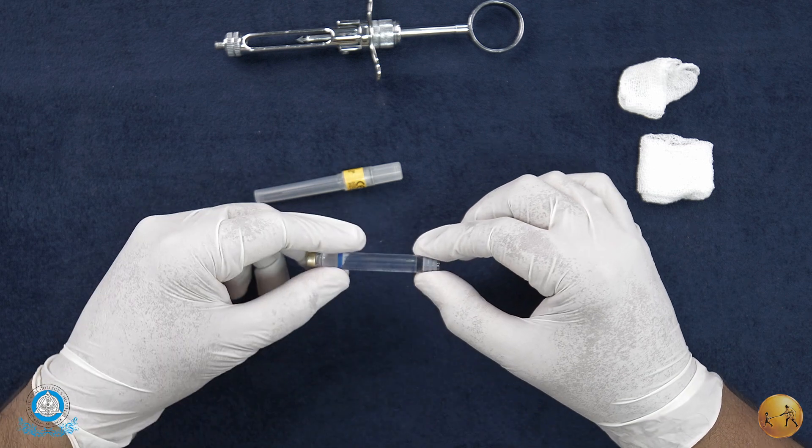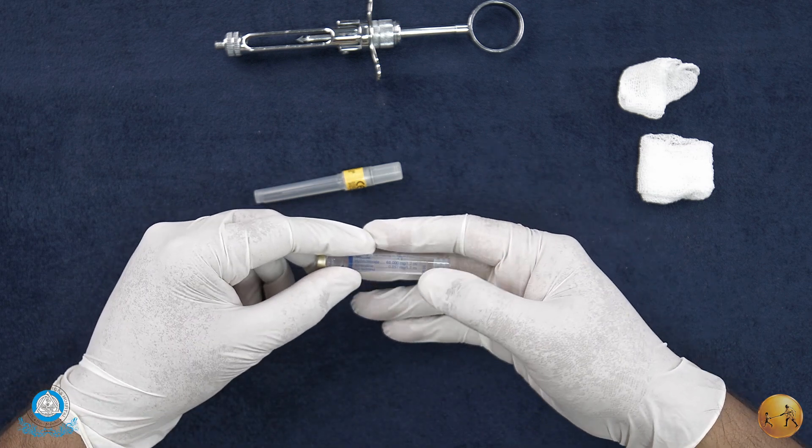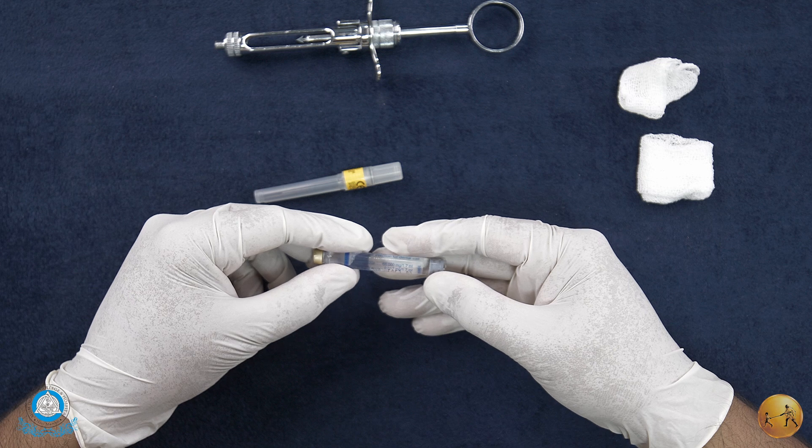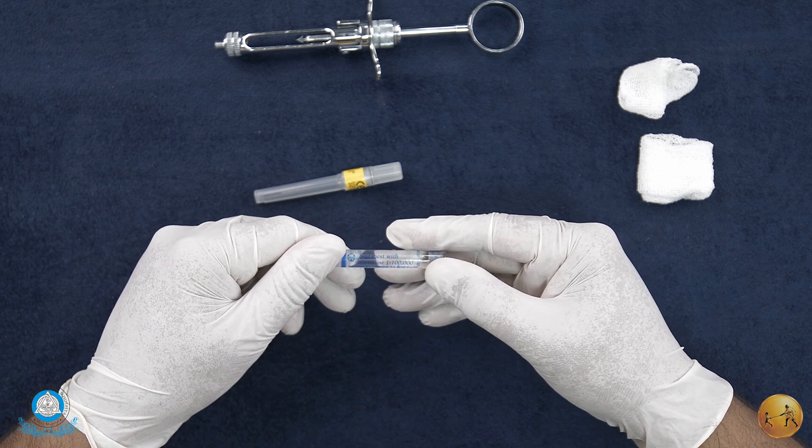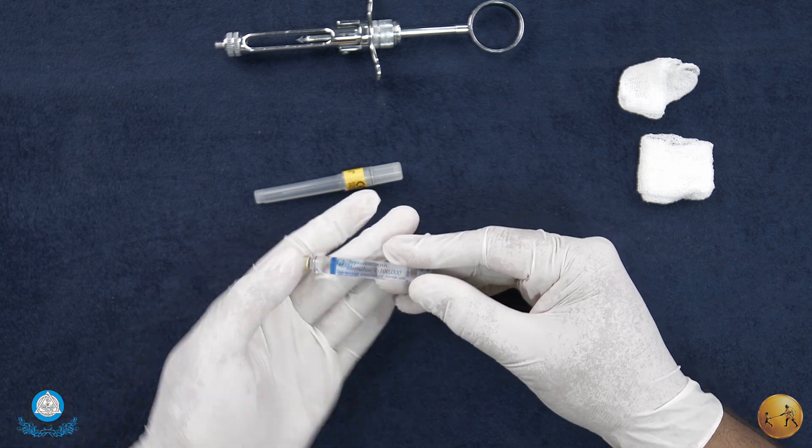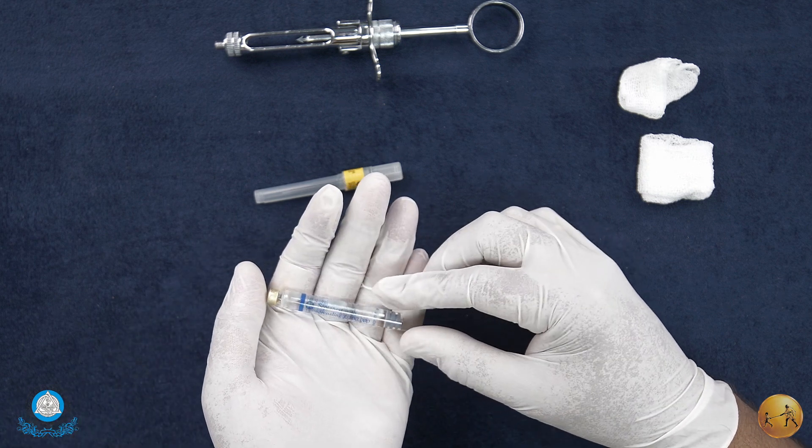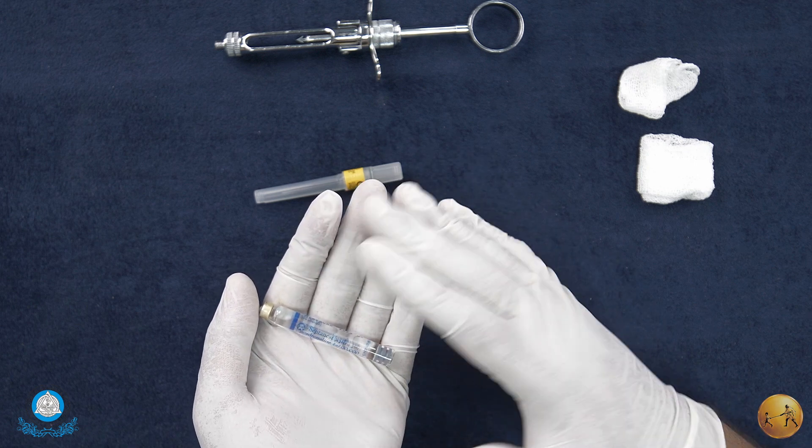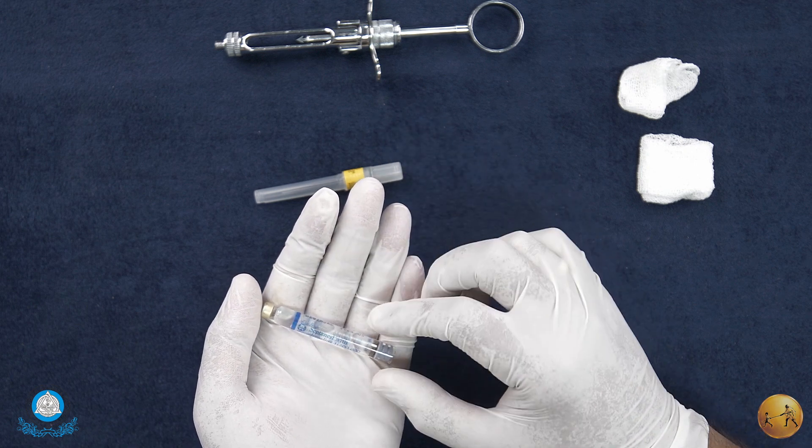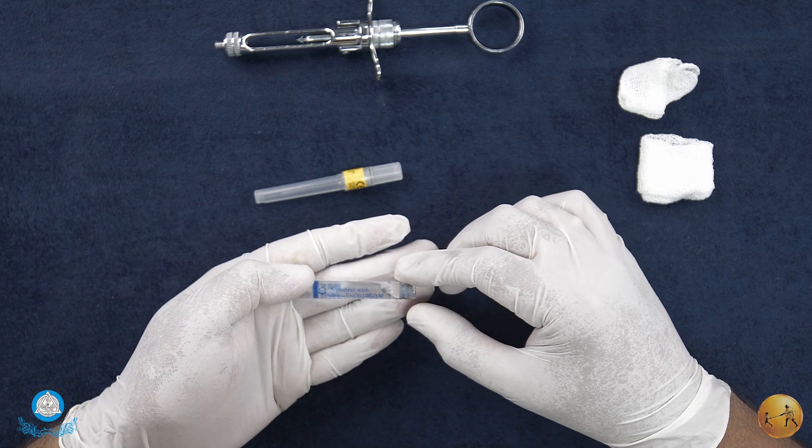It's always better to have them at room temperature between 21 to 24 degrees Celsius. There are certain cartridge warmers available, but it is recommended not to use them because warming of the solution can cause a burning sensation on injection, which is generally not a pleasant sensation for the patient.